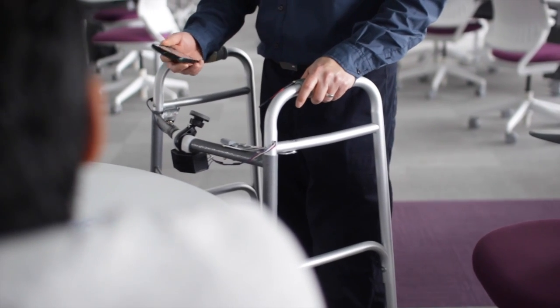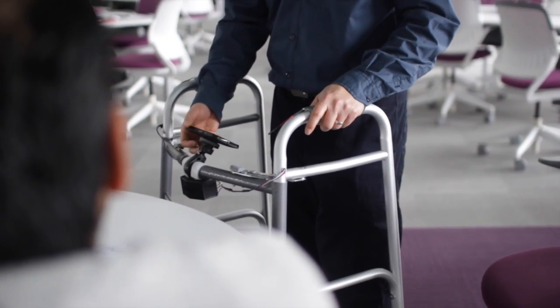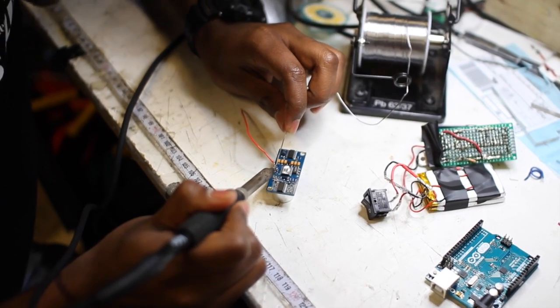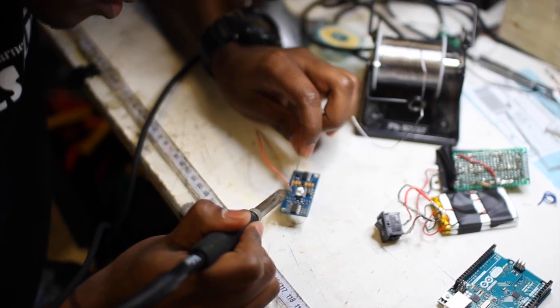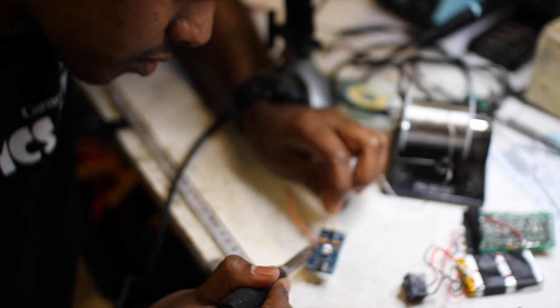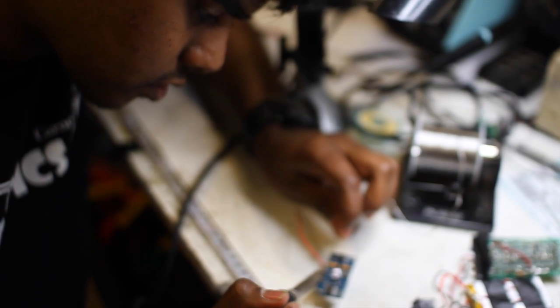NAYAN consists of distance sensors, force sensors, and a smartphone application. There is a magnetic holder which enables the user to attach their smartphone to the walker. The hardware consists of a low-power microprocessor which communicates with the smartphone via Bluetooth.